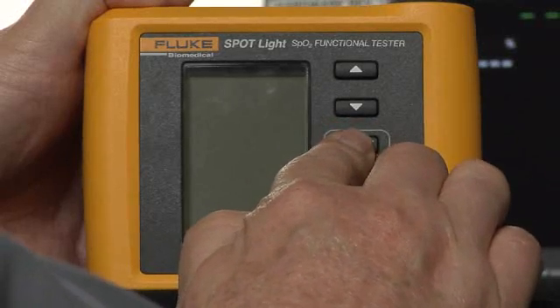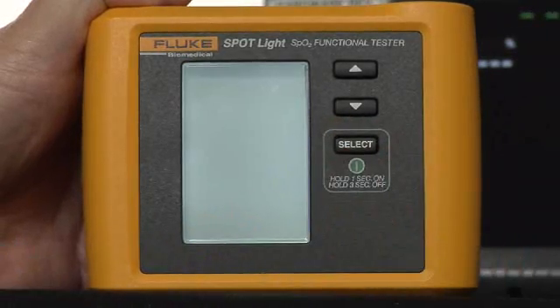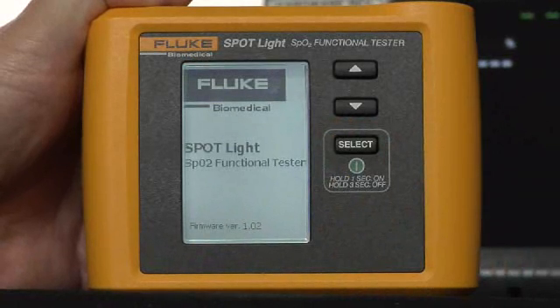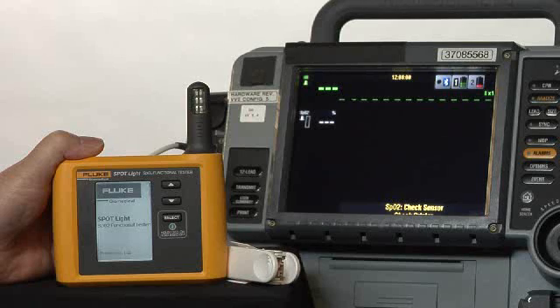I'm coming up to the clinical unit. I'm going to turn on my spotlight. It just needs to come up through its power-up screen, and as it's doing that, I'll connect the sensor.